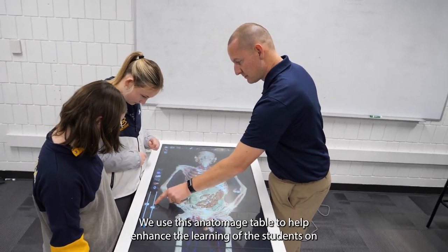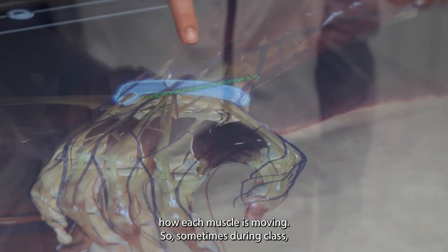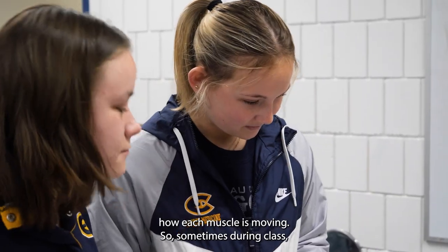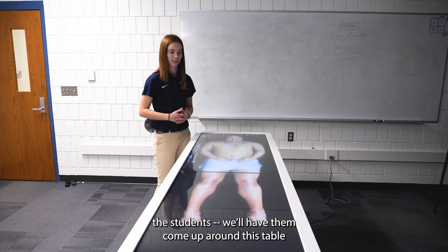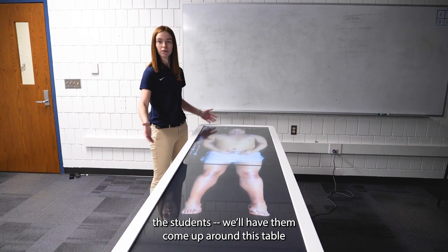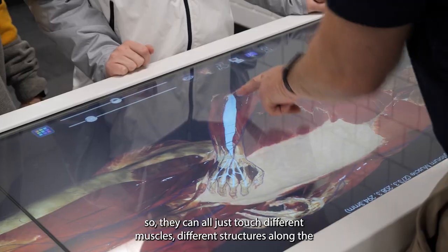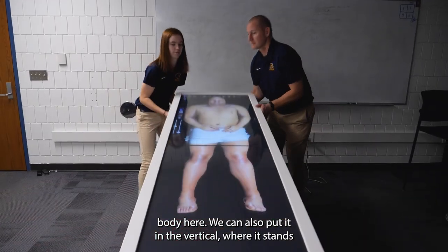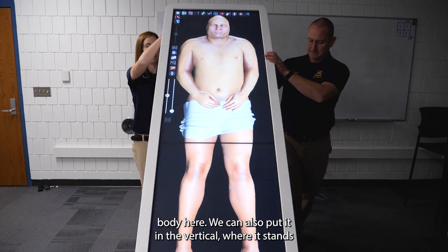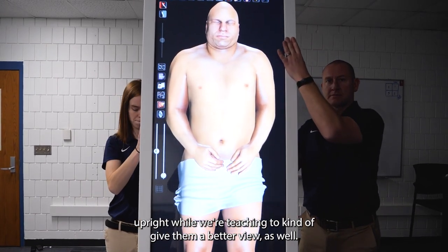We use this Anatomage table to help enhance student learning of how each muscle is moving. Sometimes during class, students come up around this table and have it in a horizontal view so they can touch different muscles and different structures along the body. We can also put it in the vertical position where it stands upright while we're teaching to give them a better view as well.